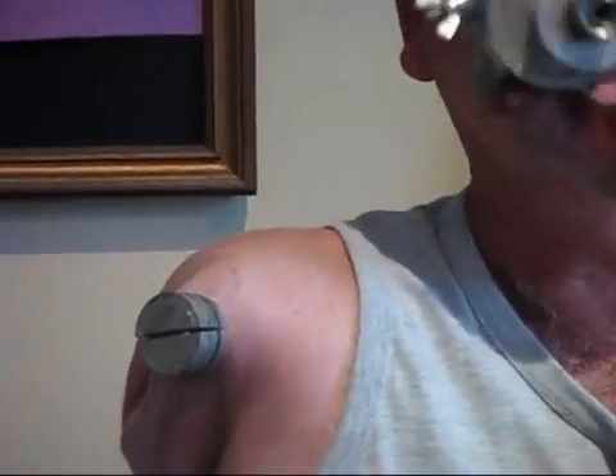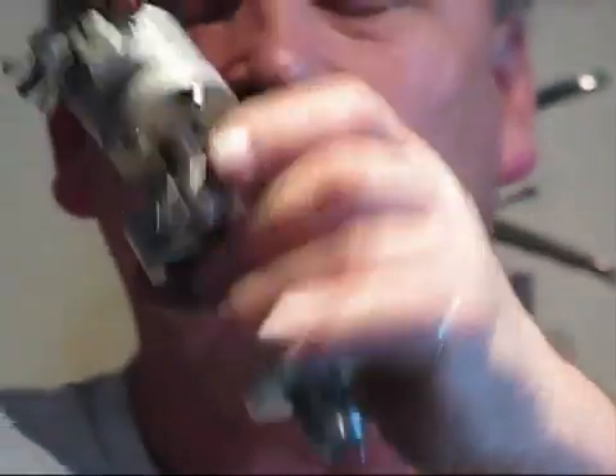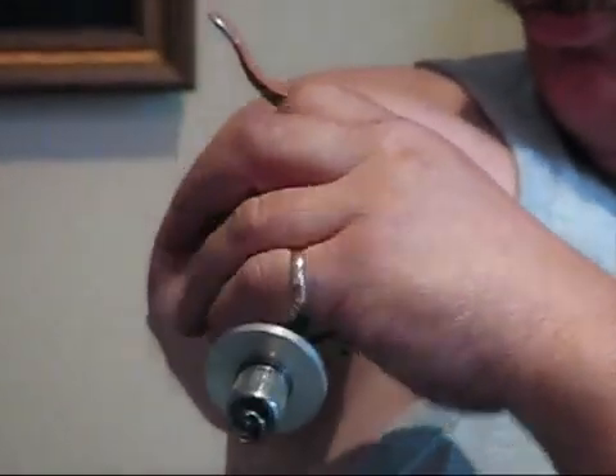This is the puck that goes over my abutment to help hold my prosthesis on. It's like a hockey puck in two halves and it clamps over like that, over my abutment. It goes on like so and then I have a small sub-arm which has a rotational device on it, which protects the bolt from any twisting or torque motion. There's a clamp with a bicycle clip on it which goes over the puck — and that's the way it's held on.